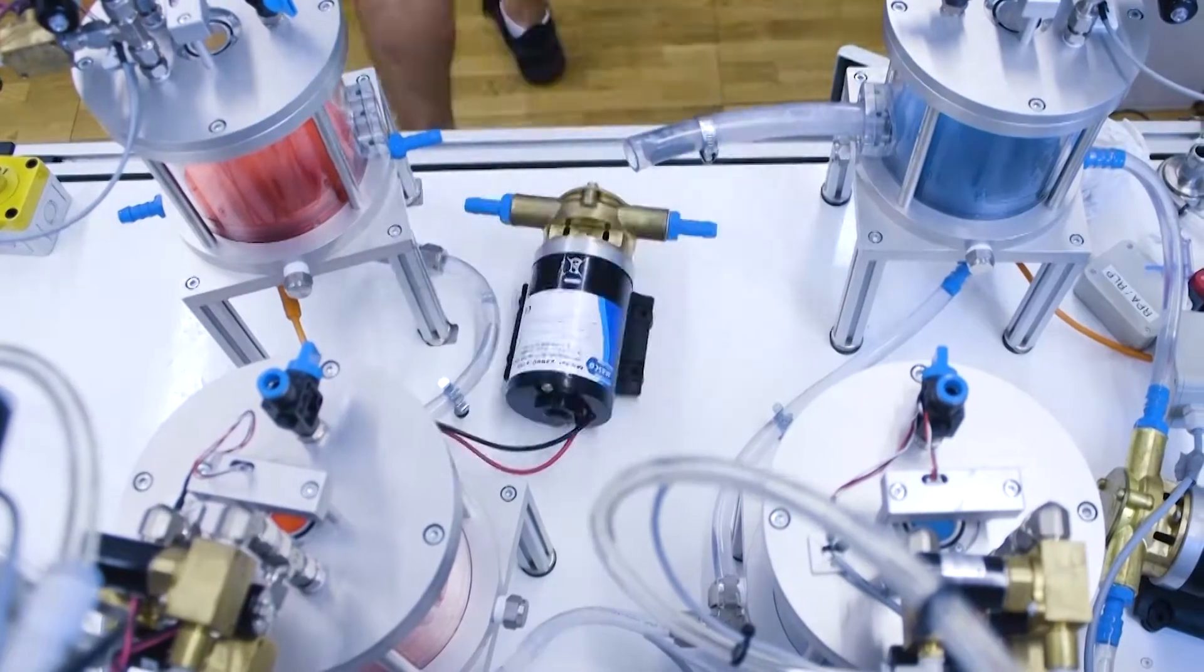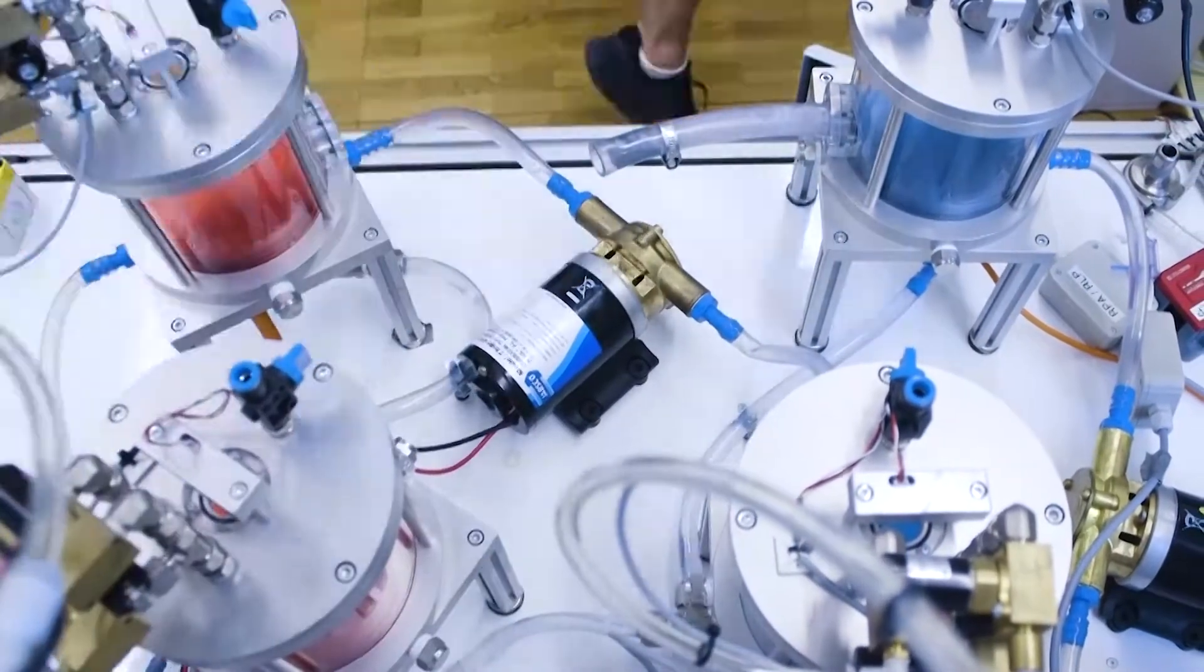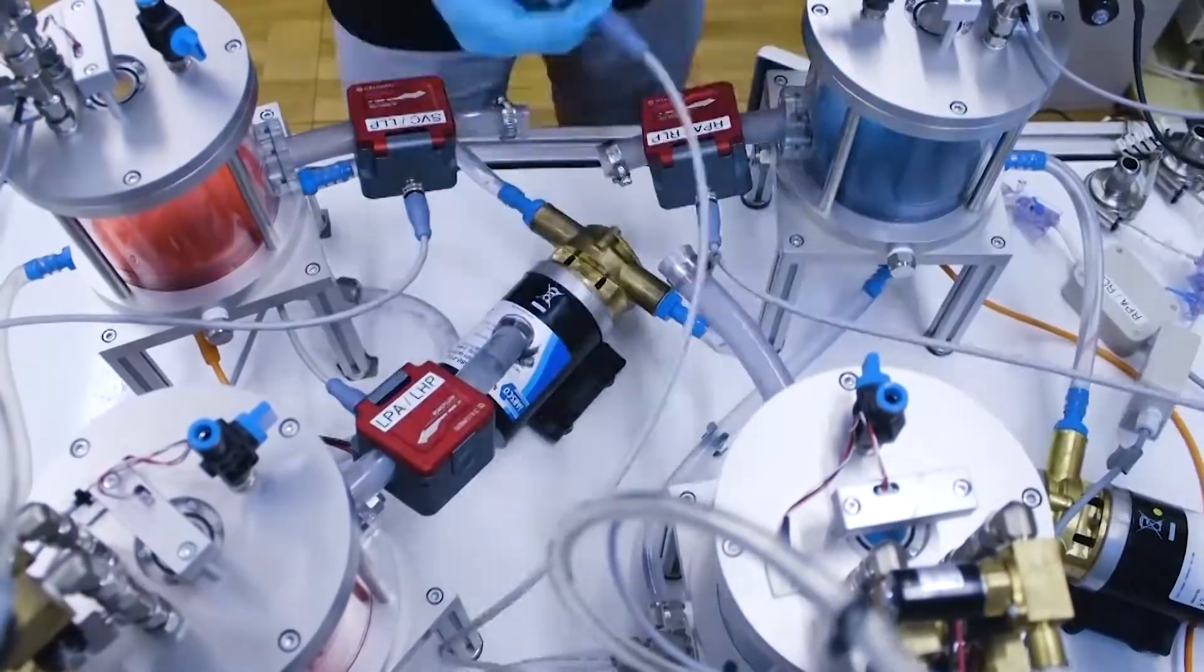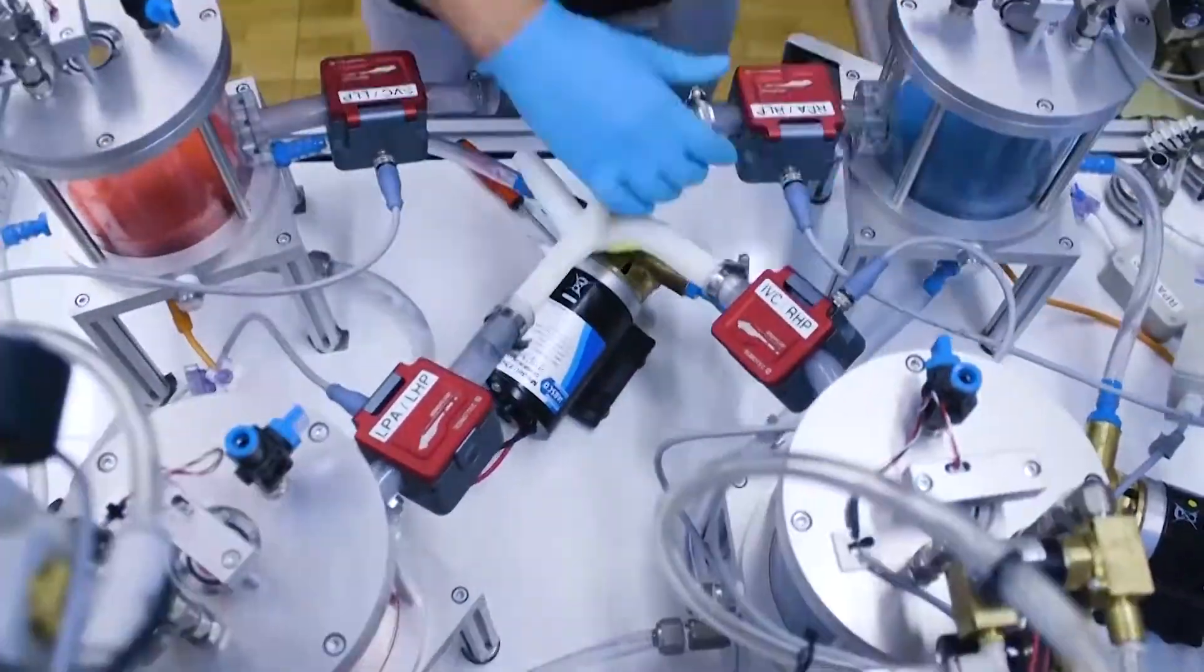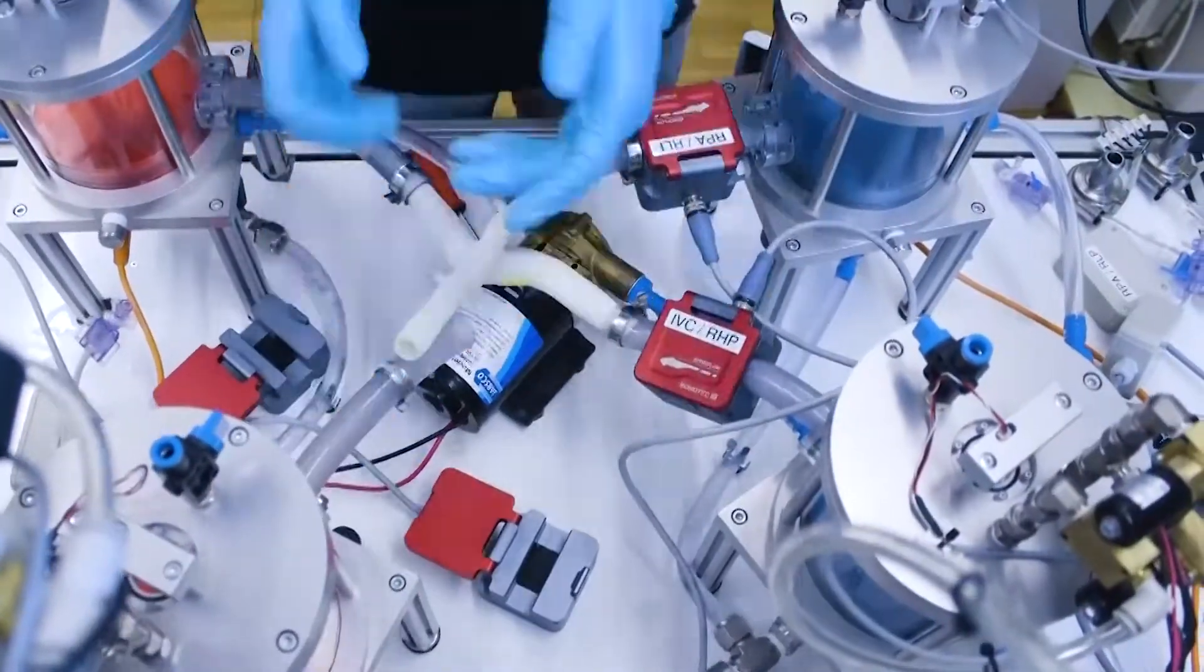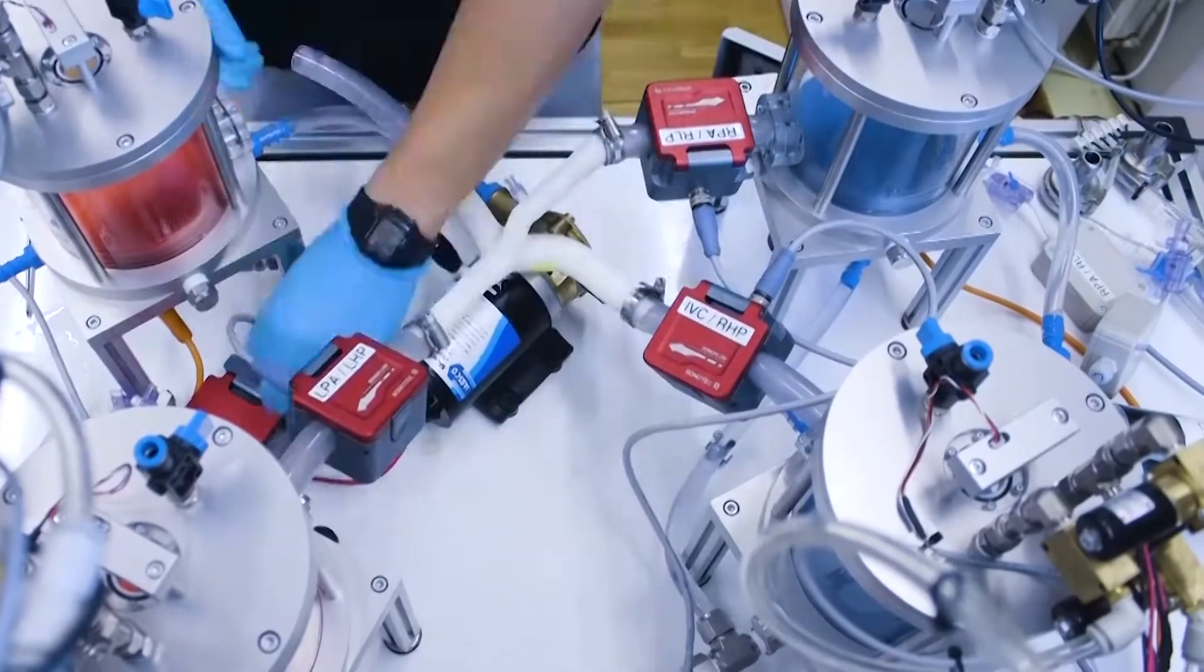As a passive implant, we tested patient-specific Fontan grafts. The hemodynamic characteristics were assessed with respect to the flow distribution in the inferior and superior vena cava as well as across the pulmonary arteries.